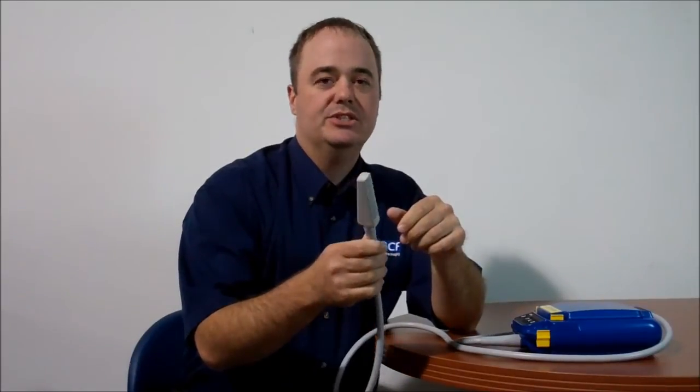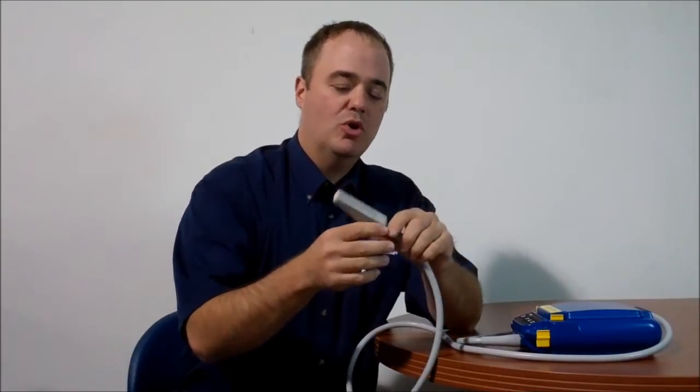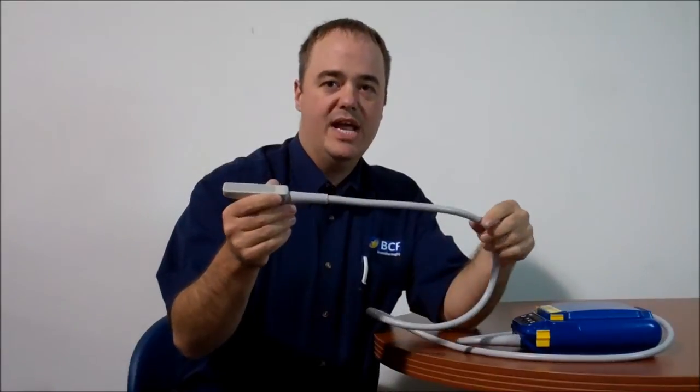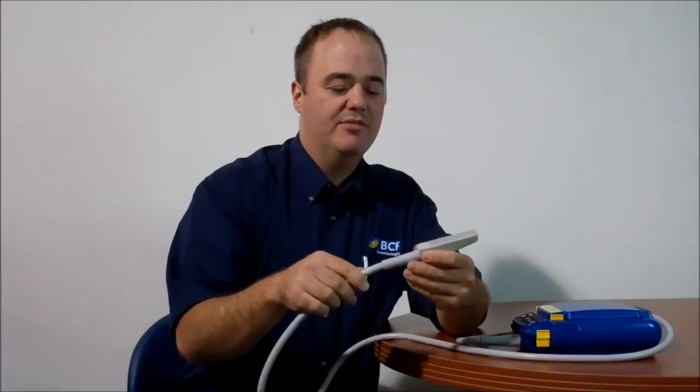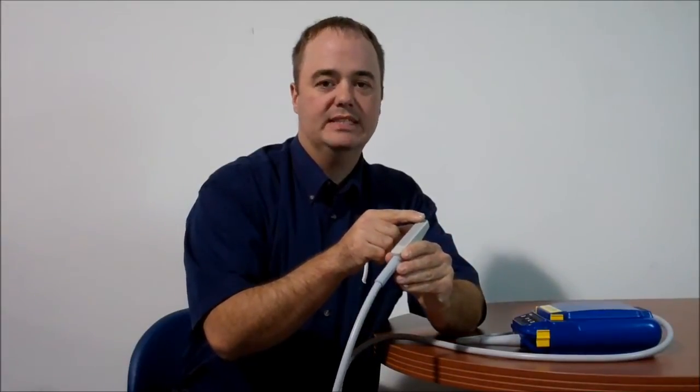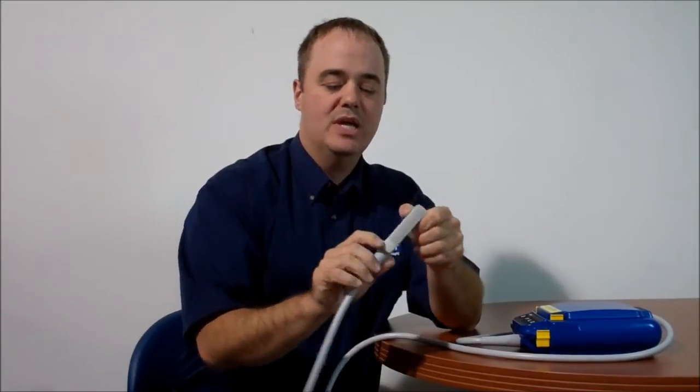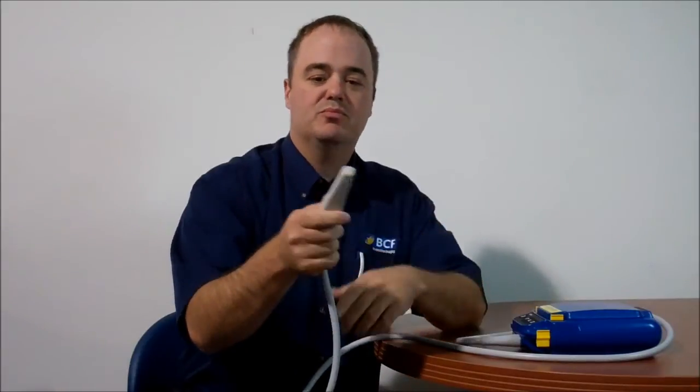Some other key advantages to our probe is our probe is double sheath with a double anchor strain relief. Also we have an extra covering layer on the probe face itself to protect the crystals. This is key to protect the probe.